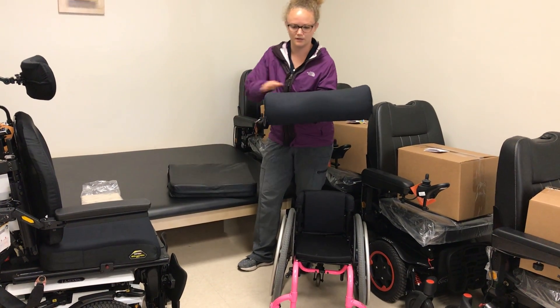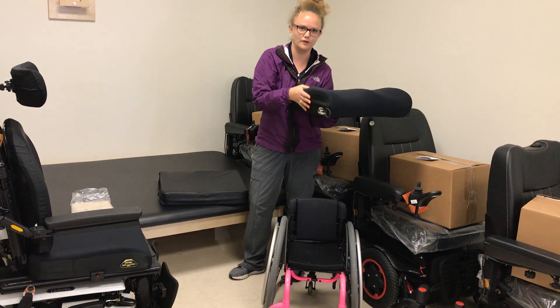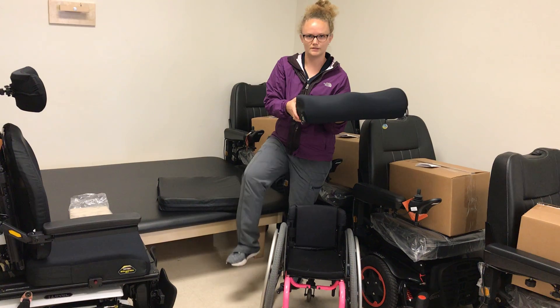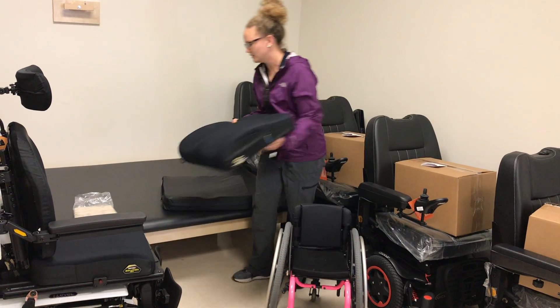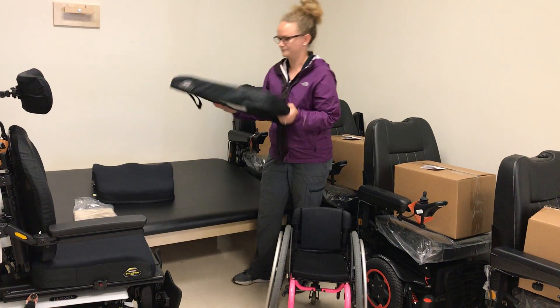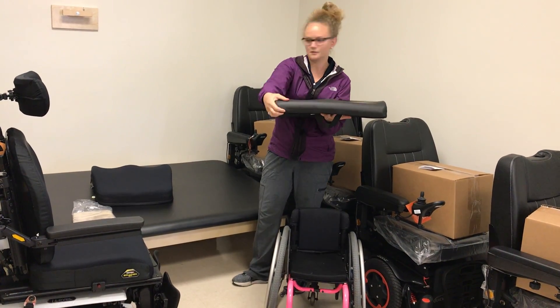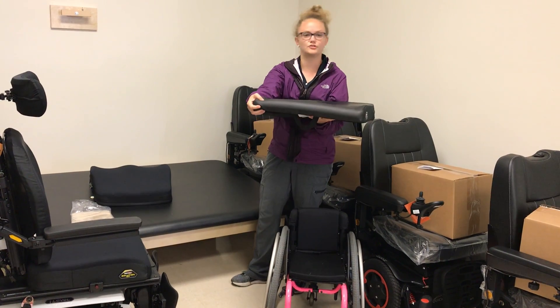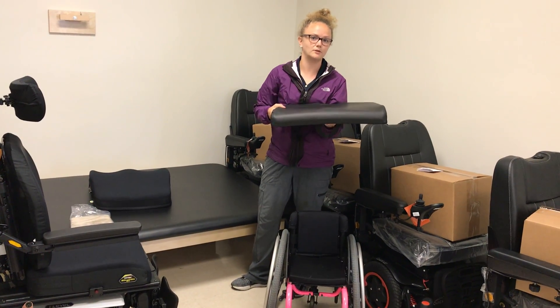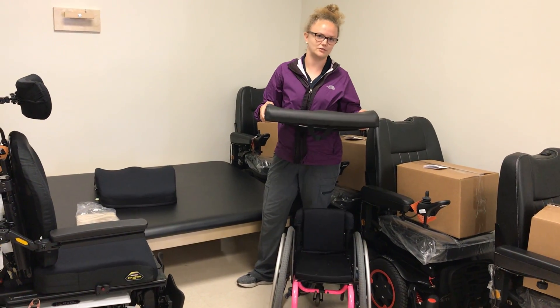This one you can see is very fluffy up at the front, which would allow the user's legs to be a little higher, whereas this one is pretty flat — so it's probably about an inch or so difference. That's just something we need to consider when we're making all these decisions.